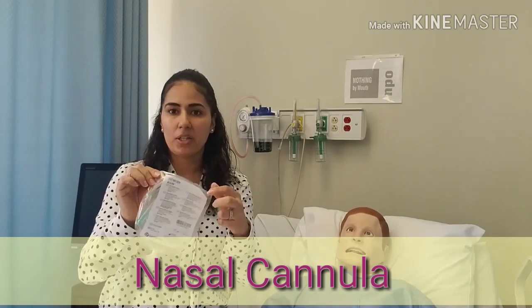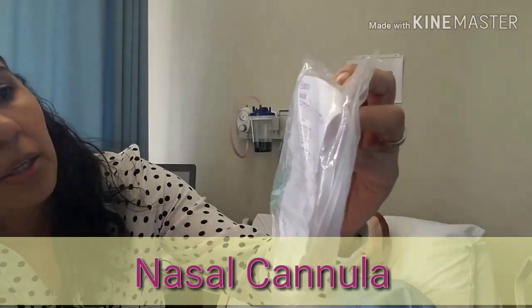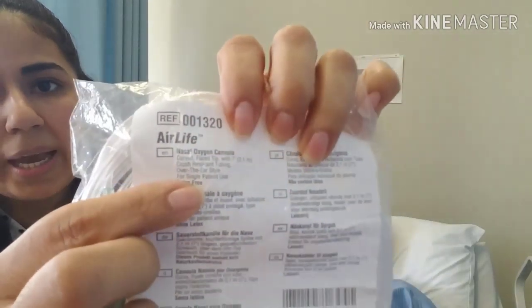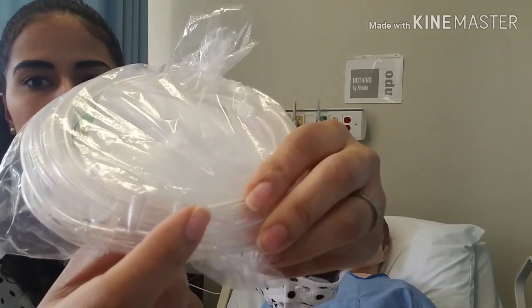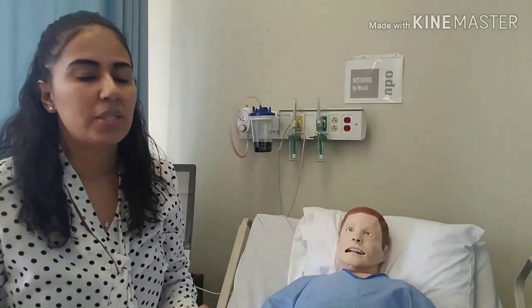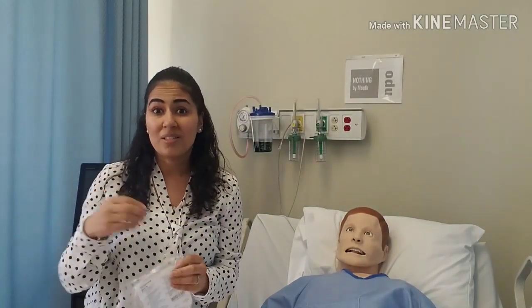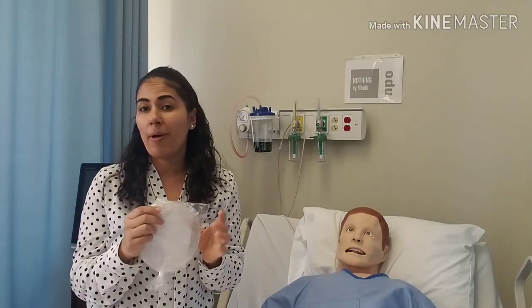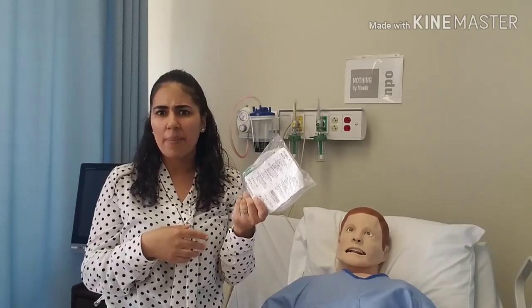The first device is your nasal cannula. It comes in packaging that says 'nasal oxygen cannula' and you'll be able to see the prongs — that's the easiest way to identify it. Sometimes in the supply closet the extension tubing is in the same bin, so you always want to make sure you're grabbing the nasal cannula and not the extension tubing. It's very common in the hospital — you'll see patients on nasal cannula oxygen often.